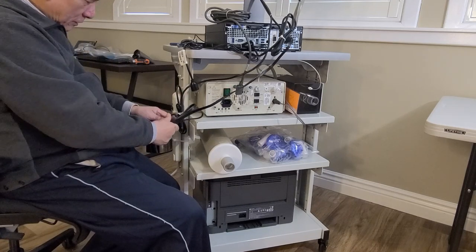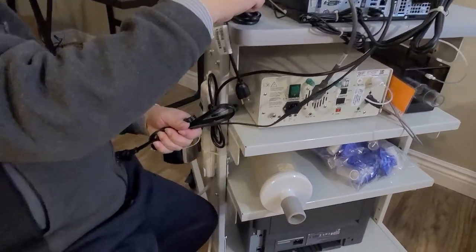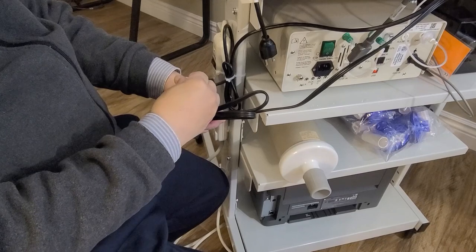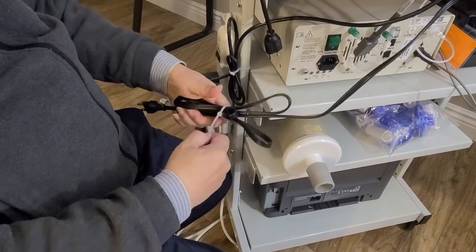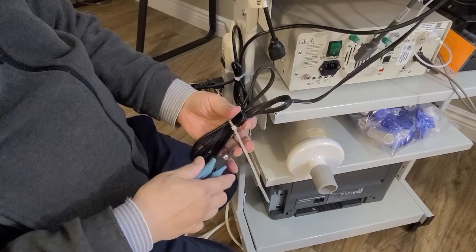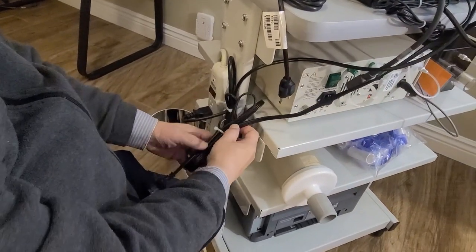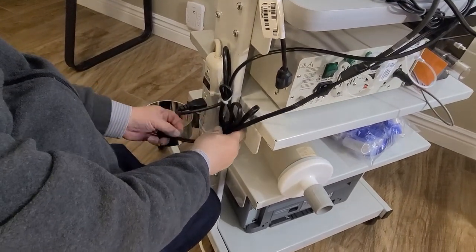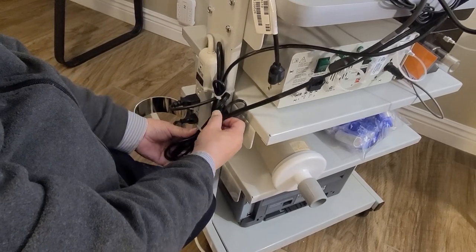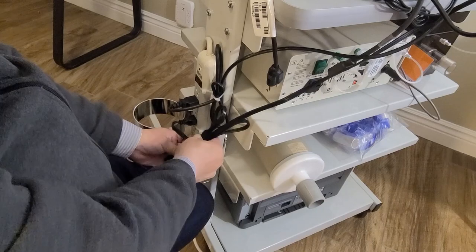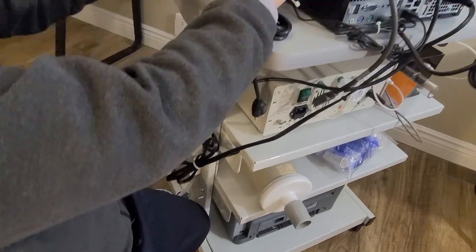We have this loop around with some extra piece that I can connect. And then I tie the power cord together so they will not be floating around.